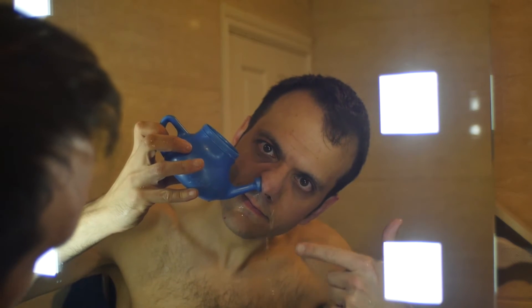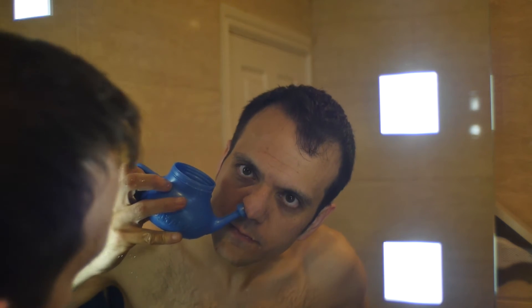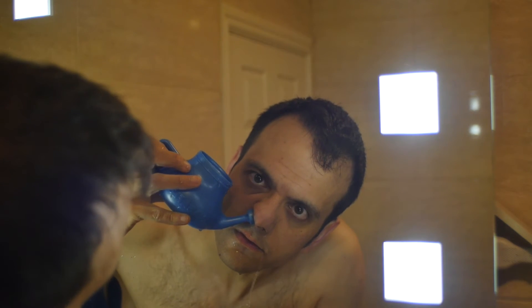Look at that — I said 'ah' because I spilled water on myself, on the sink and on the floor like a big wuss. So, rinse and repeat and do that for the whole pot. Don't do it so much that you actually drown yourself or fill your brain with water. If you feel yourself passing out, if you're sucking in too much water, don't. You're not supposed to breathe in — it's literally just going in one nostril and out the other. Do that a few times and hopefully that will help clear your sinuses.